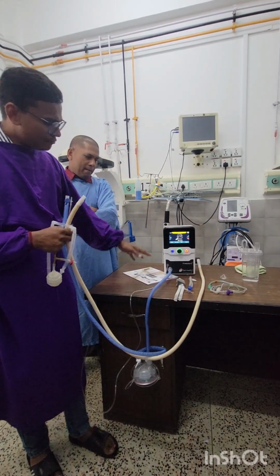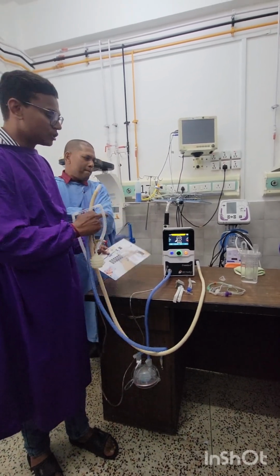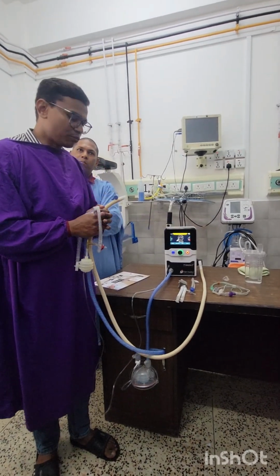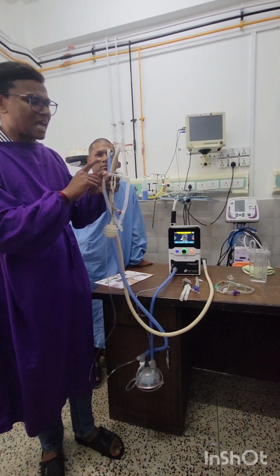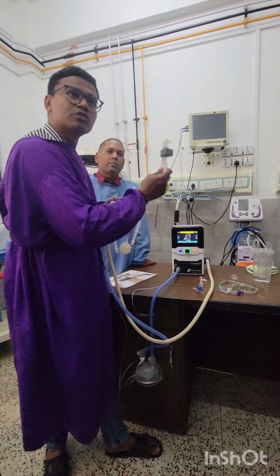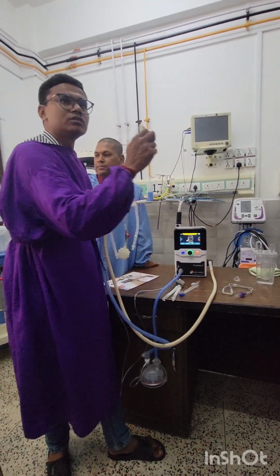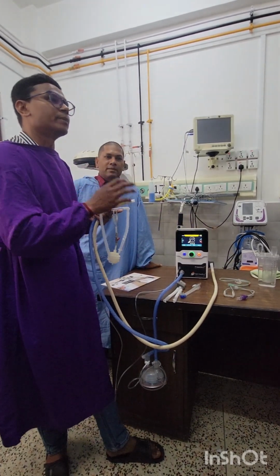So we have named the device the Freedom Plus Advanced, or Freedom Plus, just because you have the freedom to use any non-invasive modes. You have the freedom to use any ventilator circuit available in the market. You have the freedom to use any bi-nasal cannula or any interface available in the market. So you can use this type of interface. Even this will work with one device. This will work, and this will work as well. So with any interface you have, you can ventilate your baby with this device.